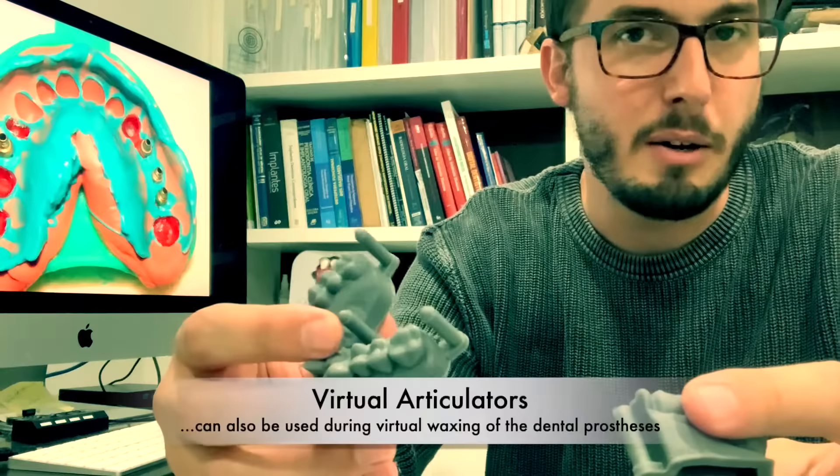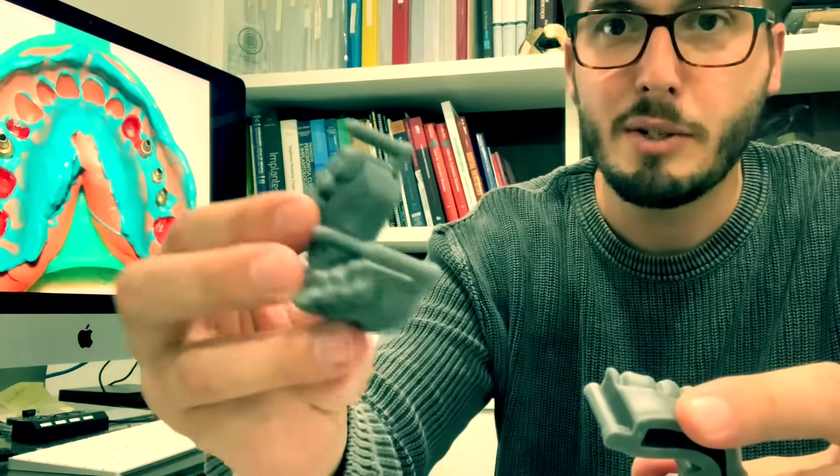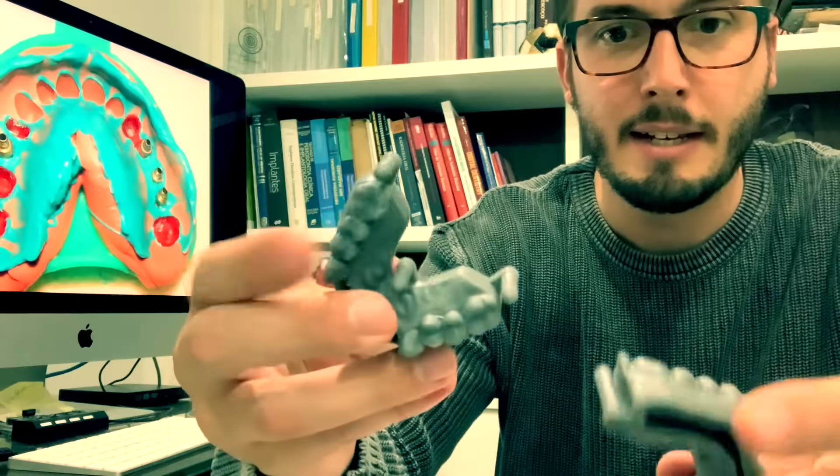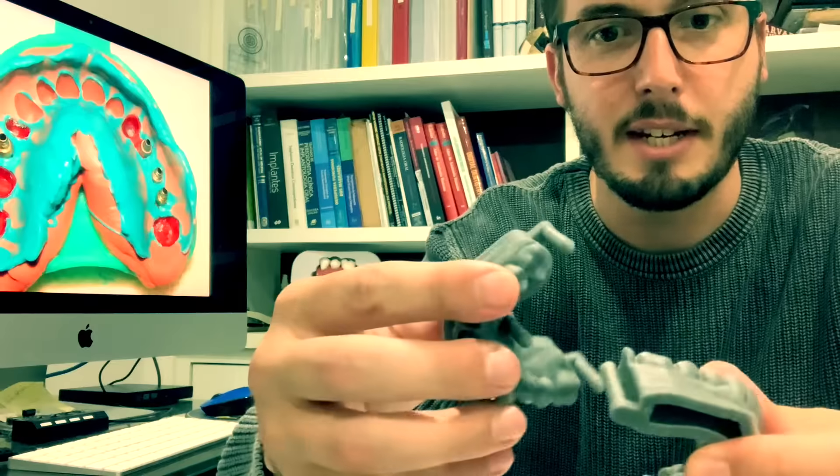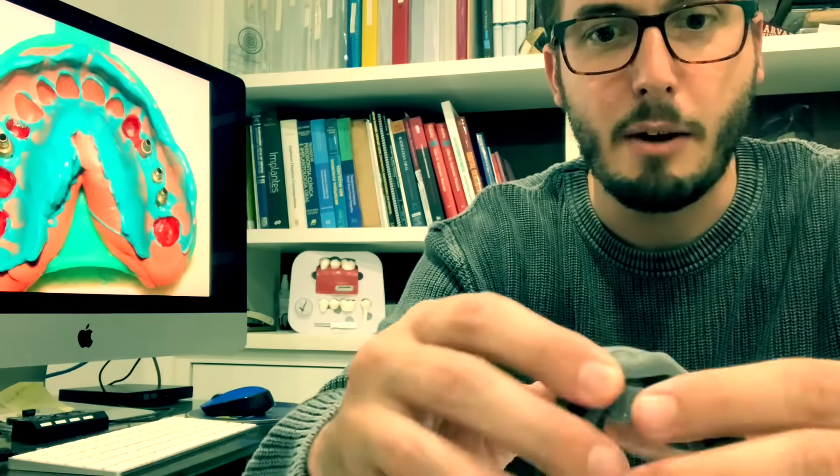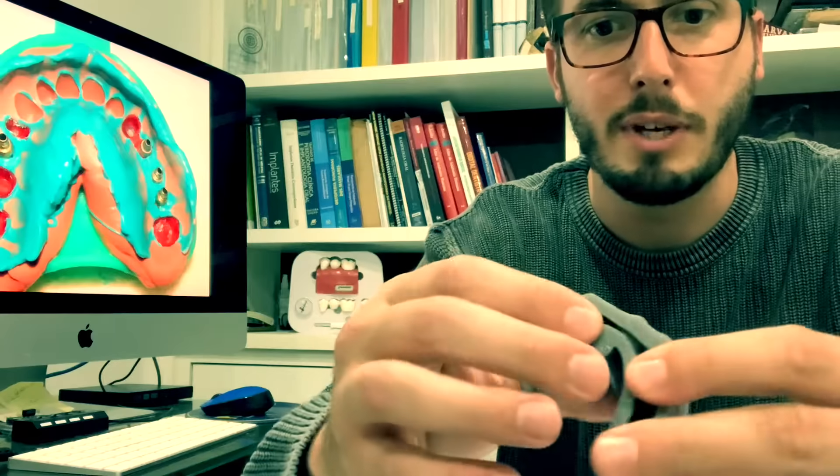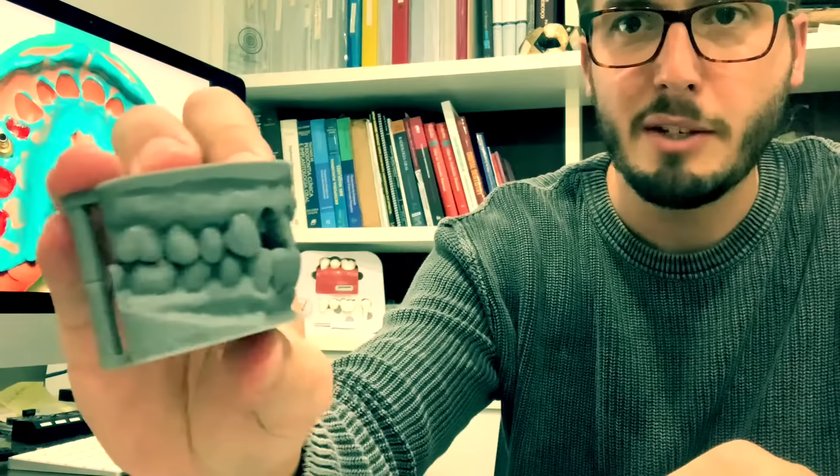Okay, so let's see how this works. We have now the supports and the supports here will actually fit the supports here in order for us to see how it's the occlusion of the patient without having a problem of balance. So that's the occlusion of the patient.